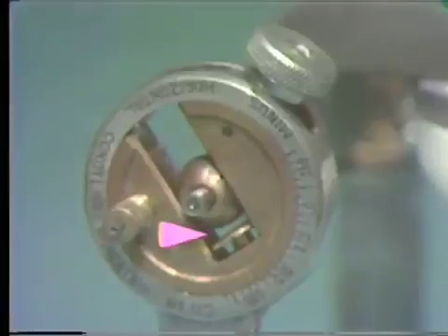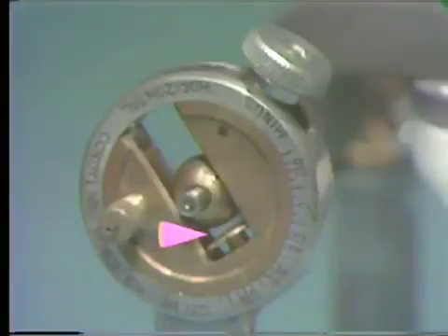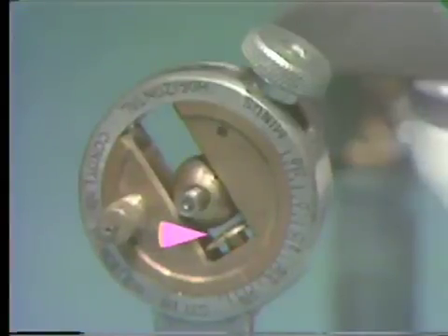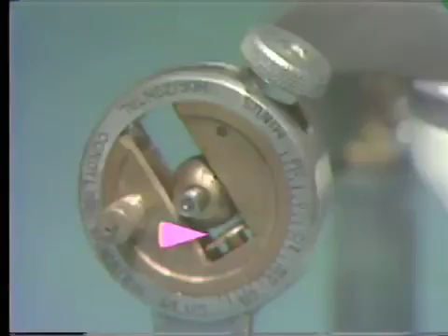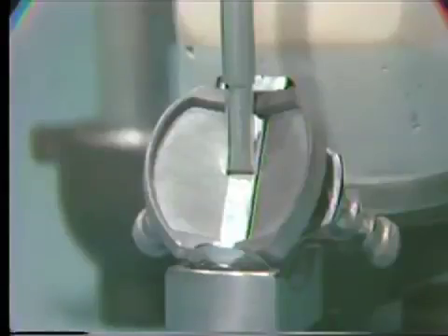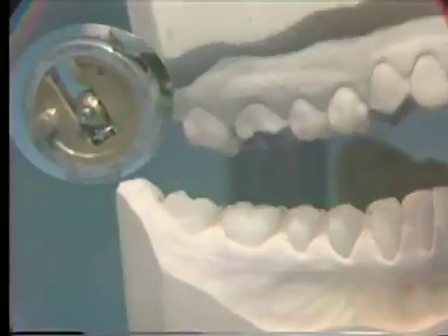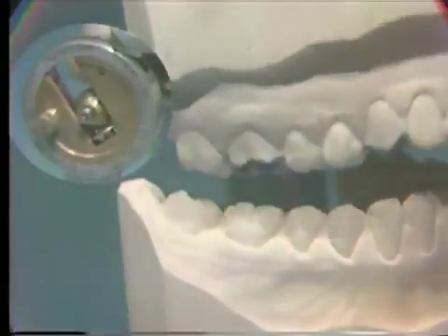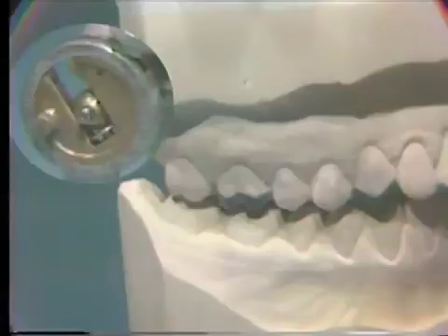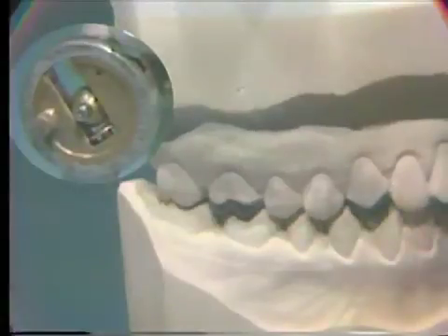When the teeth are in centric occlusion, the condylar elements are approximately one millimeter behind the condylar stops. In centric occlusion, the incisal pin contacts the incisal table. The insert shows the condylar element against the condylar stop in centric relation and the movement of the condylar element during the slide into centric occlusion.